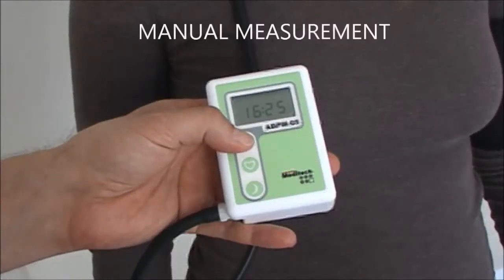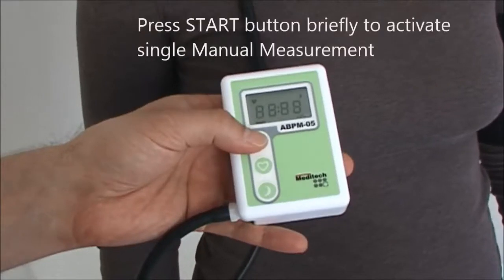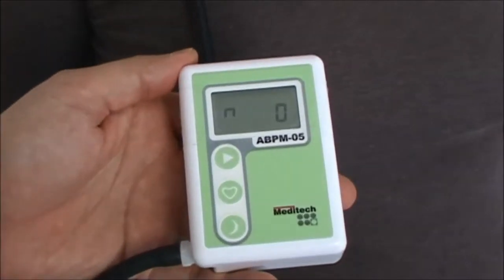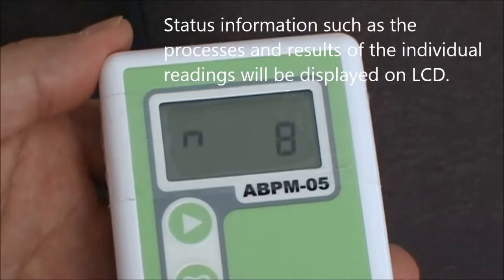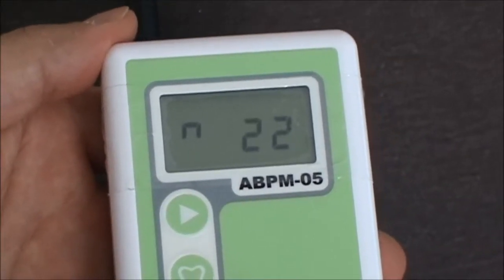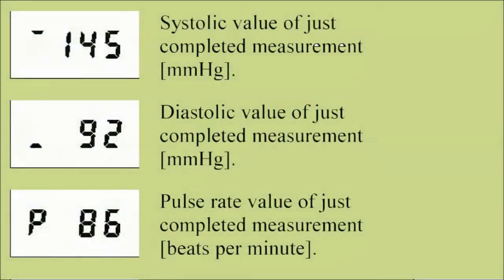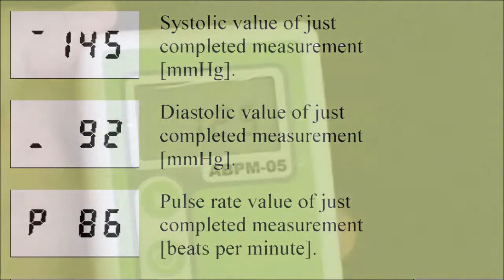The device also functions to measure individual blood pressures at any one time with or without a program running. The result of the reading will be displayed on its LCD. The systolic value, diastolic value, and the pulse rate value of the just completed measurement will be identified by a unique code on the LCD.